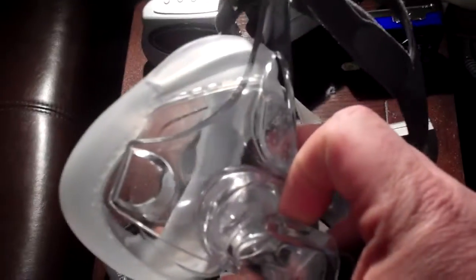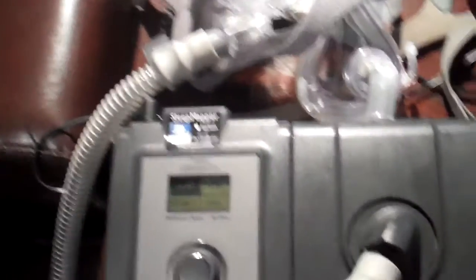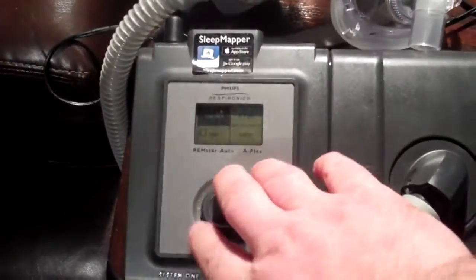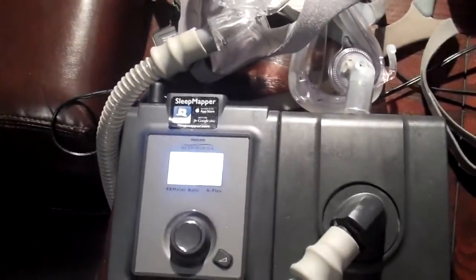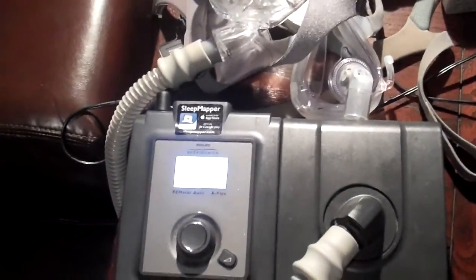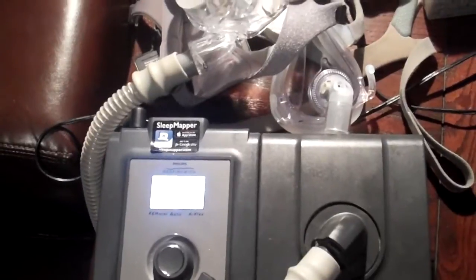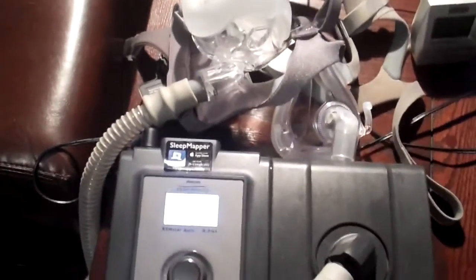And the hose - I have another mask, this is another style, another brand of mask, goes on the end here. And it basically, this operates like a vacuum cleaner in reverse. It just blows air at a certain pressure, and there's a little computer in here and some circuitry that tell the computer or the blower how much air to blow, how much you need for that night.